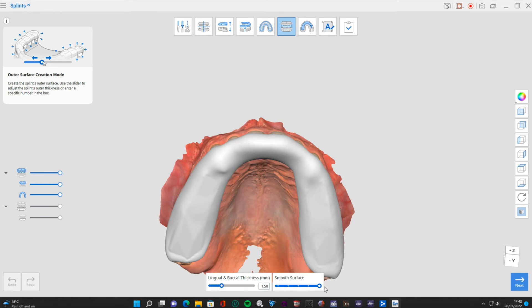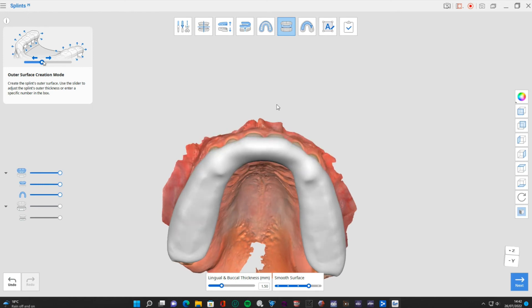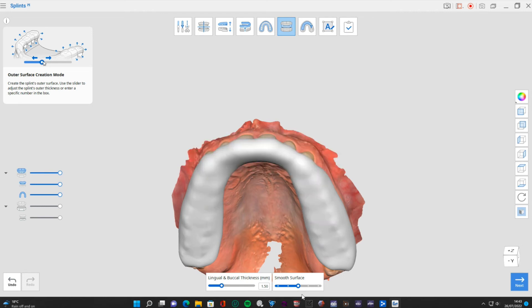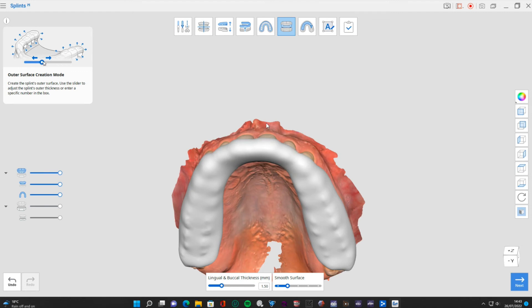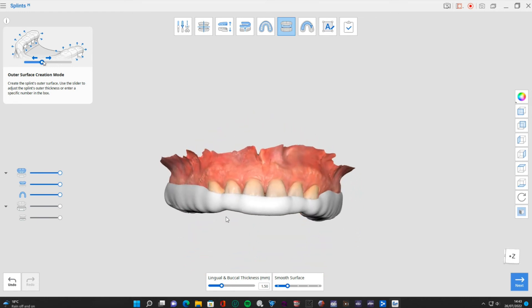Smooth surface - you can see it's quite smooth. If we turn this down it might be more preferable for people who don't like things being so smooth. From experience, some people prefer the surface to feel a little bit more like their teeth rather than very flat and unusual - it helps the teeth feel better together. It's personal preference. Turning it down just a little bit gives it a bit more ridge so you can feel those teeth there.